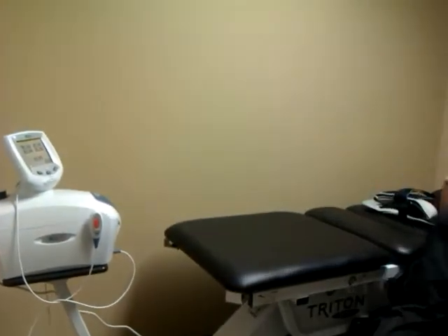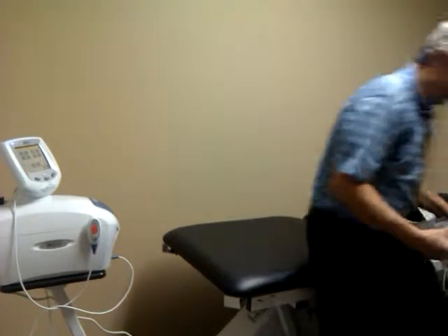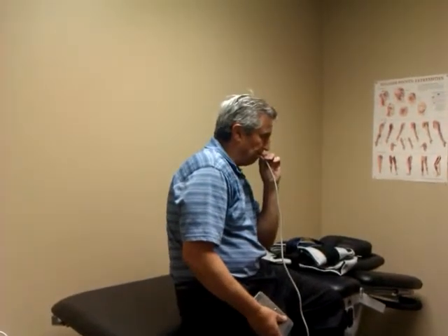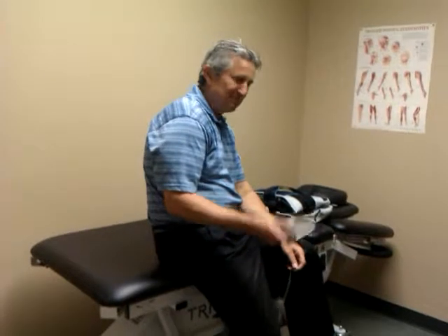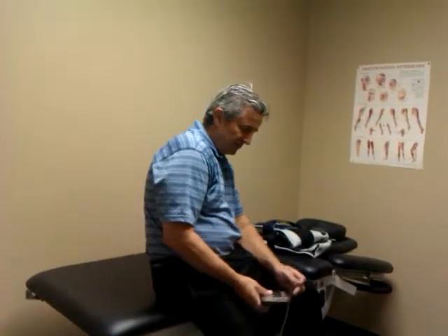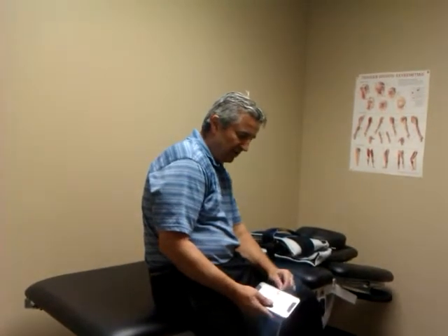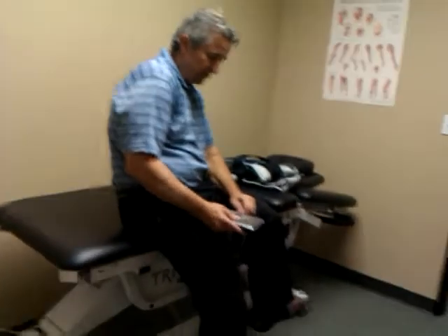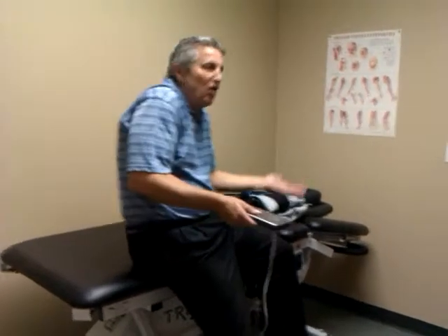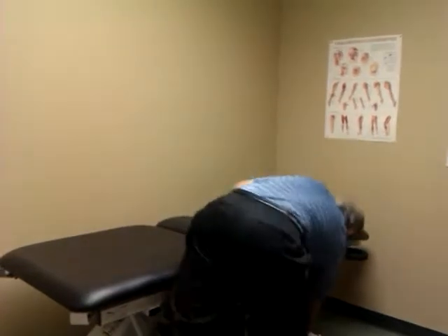One more maintenance thing: this foot switch does not have any wires in it, so you don't have to worry if you see it pop off or trip over it. It's all done with pneumatics. There are two brass nipples here — just put it on the one that says 'down,' that's how it's structured and lined up, and then you're back in business. If you see it off all of a sudden, it's no big deal.